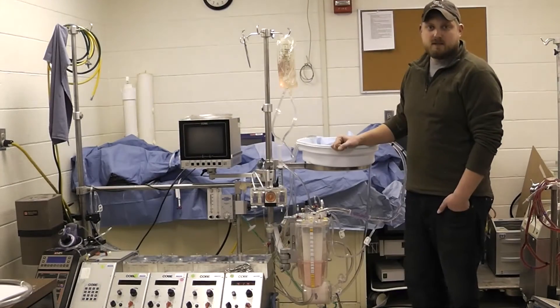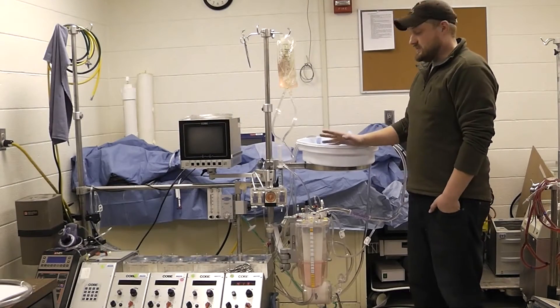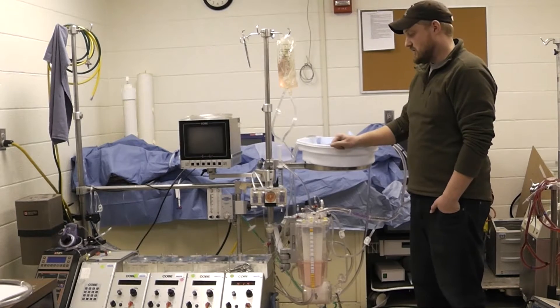Hi, I'm Brian Tarot from the MSOE perfusion program and in this video I'm going to be covering arterial pump head change outs.